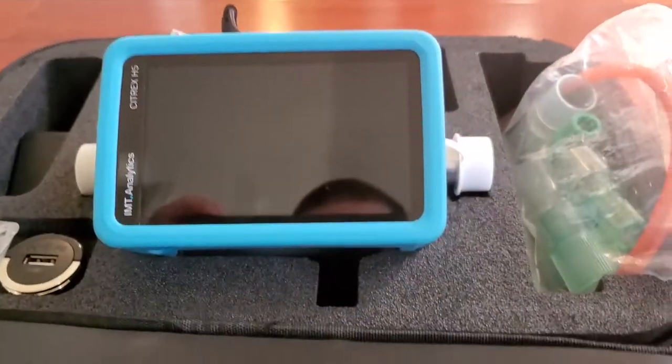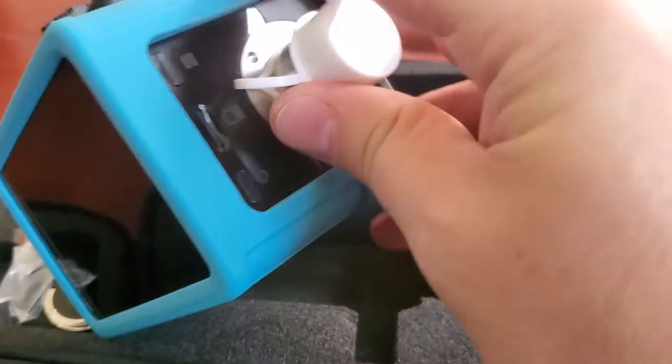I'm going to start reading on it, and tomorrow I'm going to surprise my ventilator specialist. Today he was lamenting about his own flow meter that he currently has to use — it is antiquated to say the least. I'm going to surprise him with this little guy and let's get his reaction!